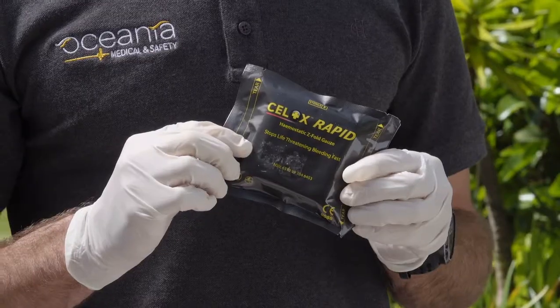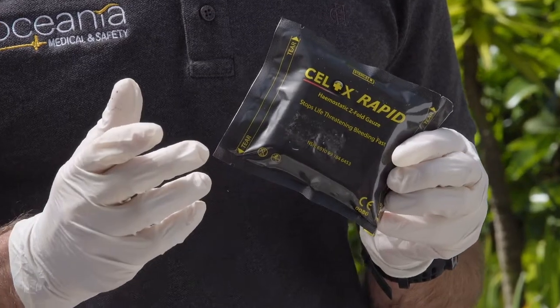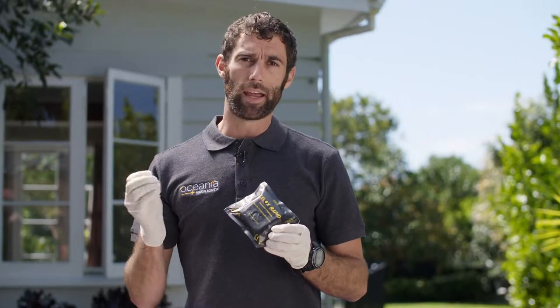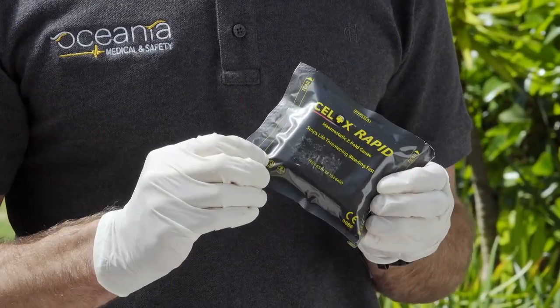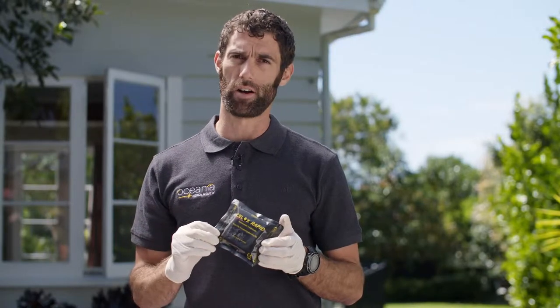Celox Rapid is the most advanced modern clotting gauze on the market, used by law enforcement and militaries all around the world. It gives your patient the best chance of survival — especially if you're remote, every drop of blood that hits the ground cannot go back into the body, and you need that blood to carry oxygen and keep the person alive. This will speed up the clotting process, stop a bleed, and give your person the best chance of survival.